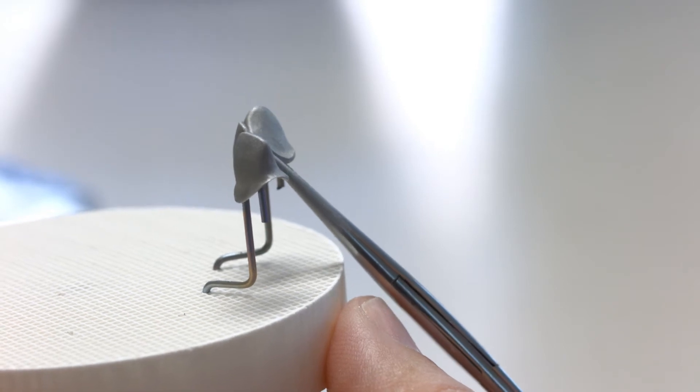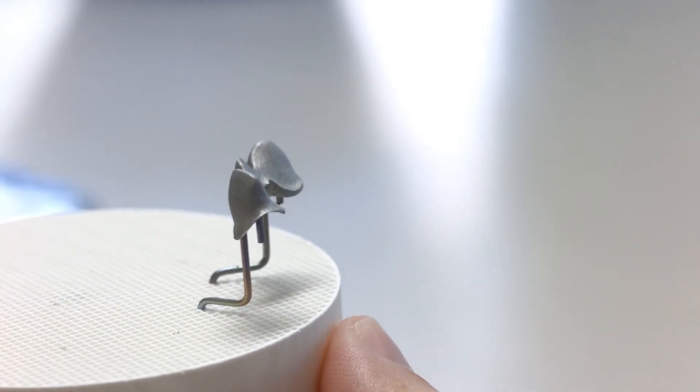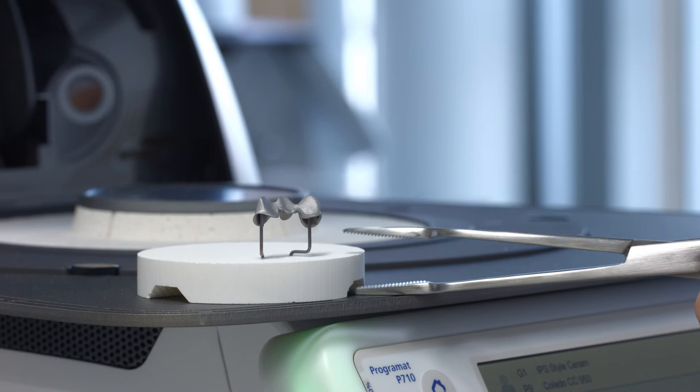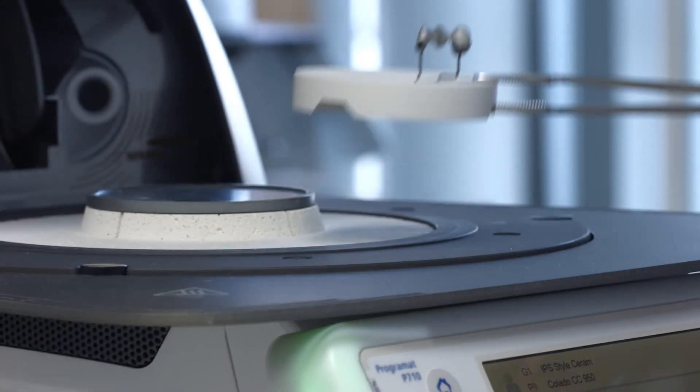Conduct the oxide firing according to the instructions of the alloy manufacturer. Make sure to support the framework properly on the firing tray.